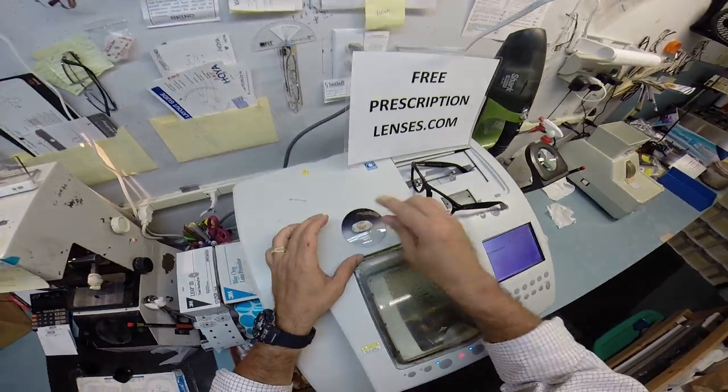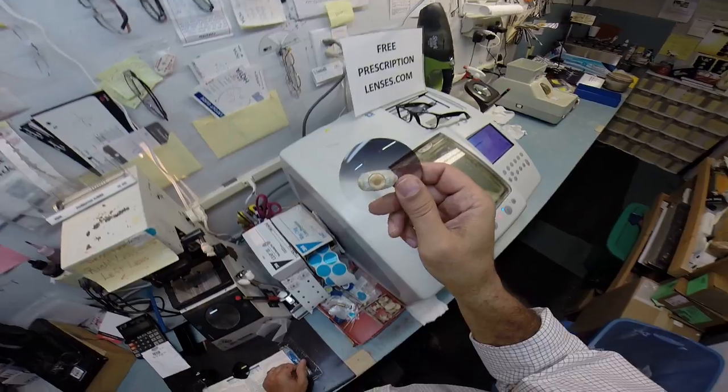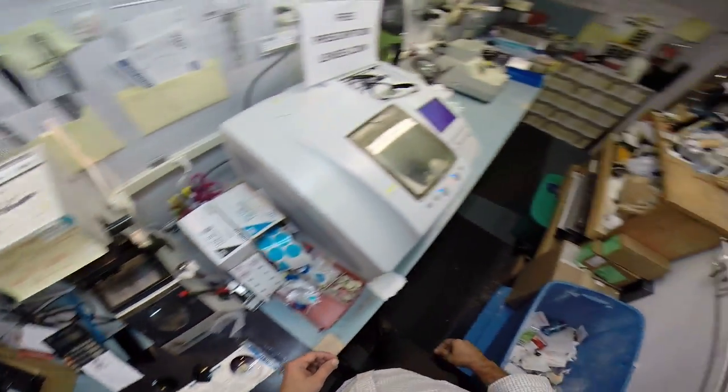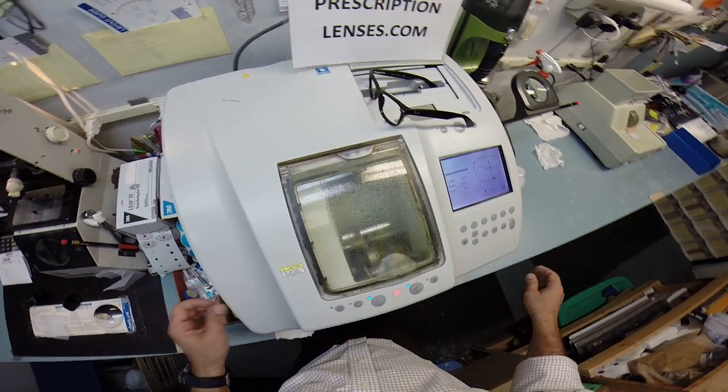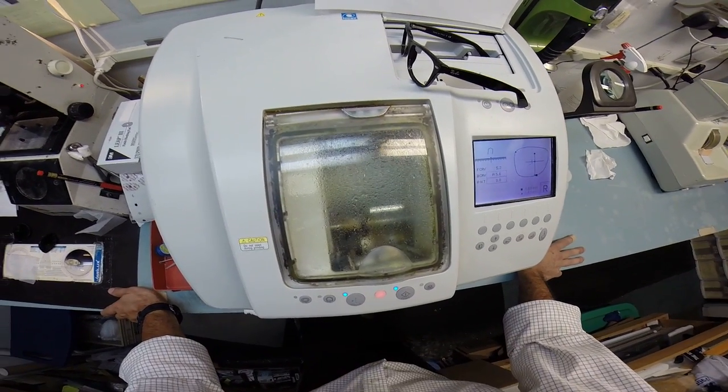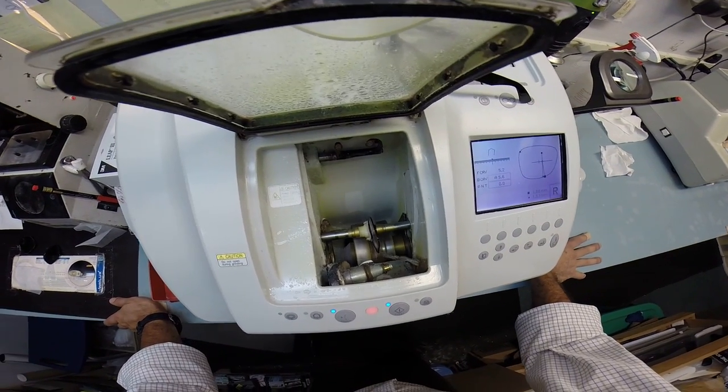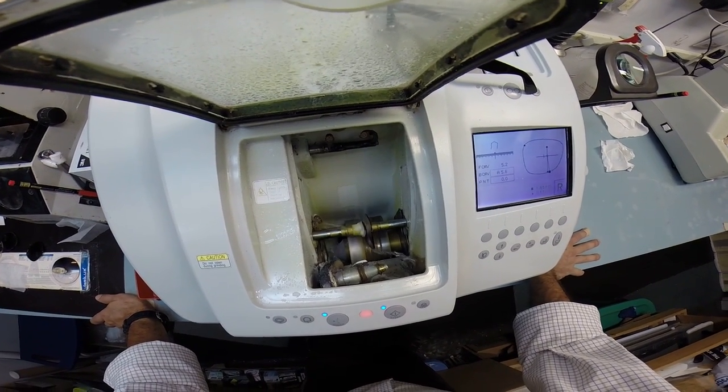These are plastic lenses because polycarbonate is very difficult to tint. You will be getting plastic lenses with full UV protection. It has UVA and UVB protection. We know what the sun's harmful ultraviolet rays can do to your skin from overexposure, where your eyes are eight times more sensitive than your skin. You have permanent sunscreen for your eyes now.